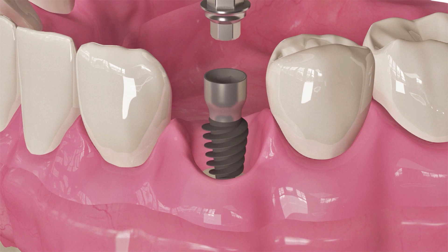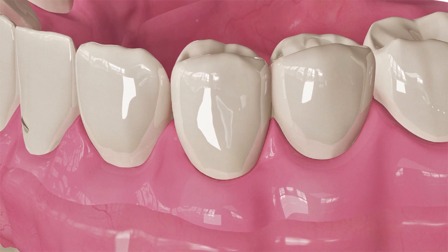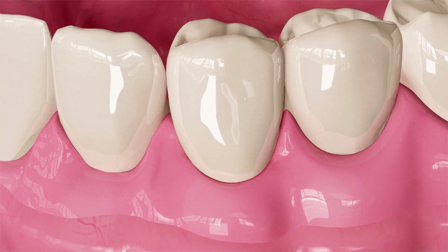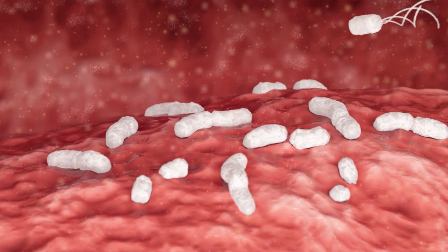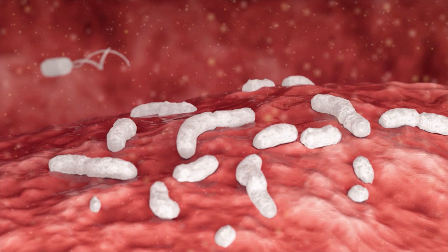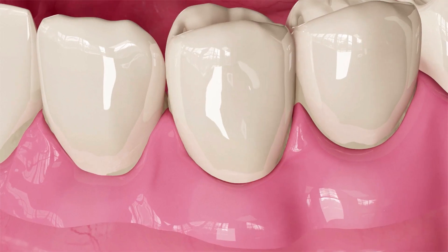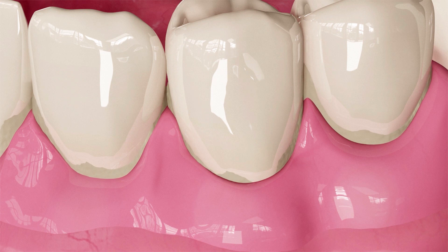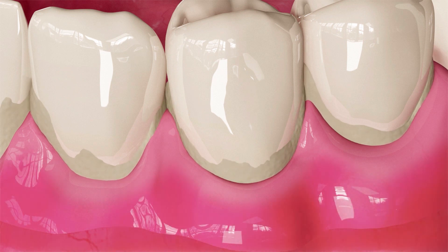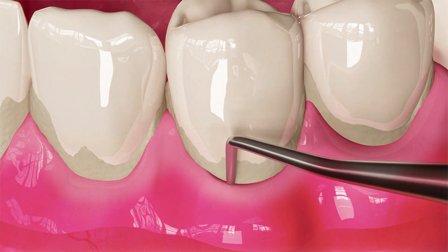Every dental implant professional is familiar with the foul smell after opening the assembled implant abutment structure, for example after replacing the healing cap with an abutment. The reason is bacterial colonies. The implant gets contaminated with germs from the oral cavity immediately after insertion. Bacteria growth starts the moment after locking the fixation screw. Up to 80% of implants present mucositis symptoms confined to the soft tissue around the implant.